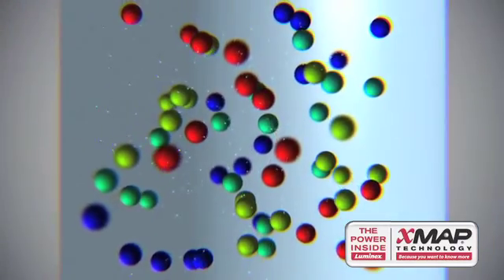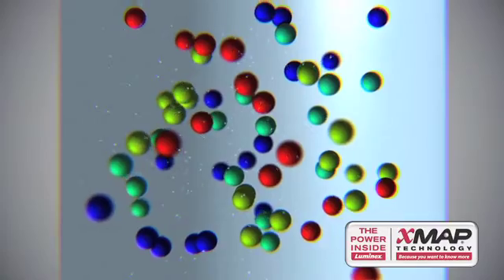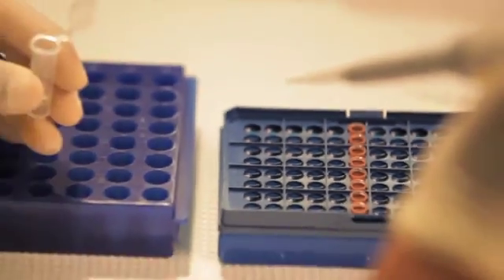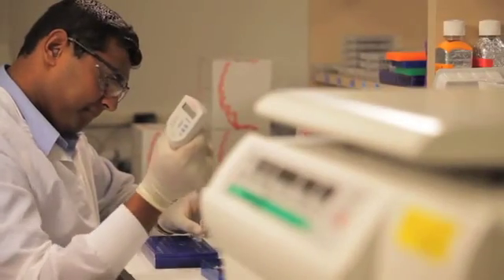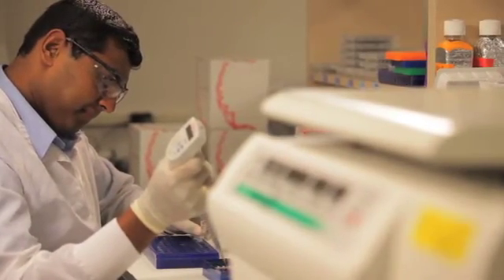As many as 50 different antigens can be tested concurrently in a single reaction. These reactions are performed in a 96-well plate, allowing high-throughput sample processing needed for marker validation.